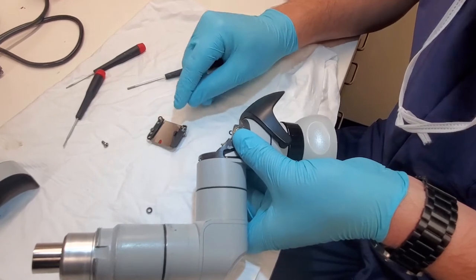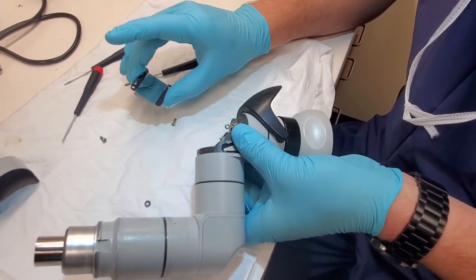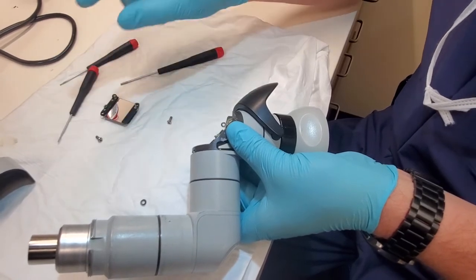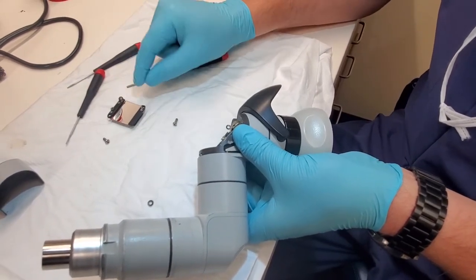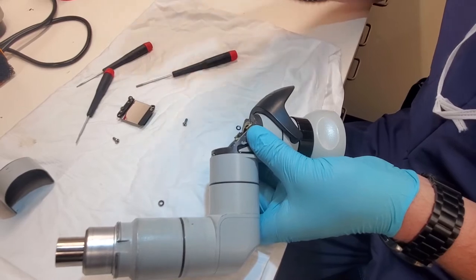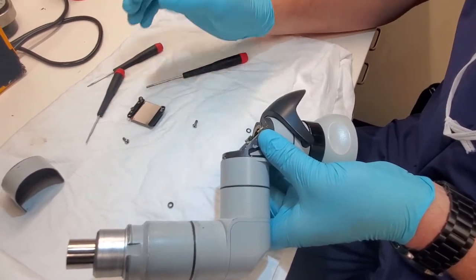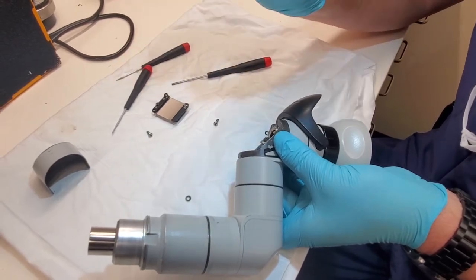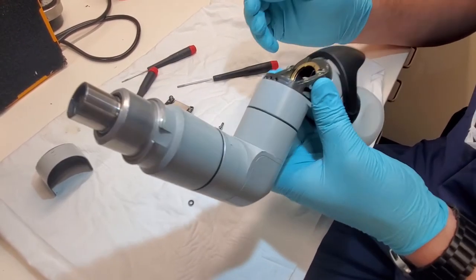Now do not touch the surface of the prism. It is an absolute pain to get it to that beautiful mirror shine. If you touch it, if you get a smear or grease on it, it's going to create a reflection and refraction of the light and it will not give you a perfect, crisp, clean Zeiss image.